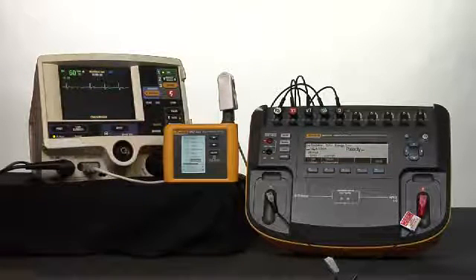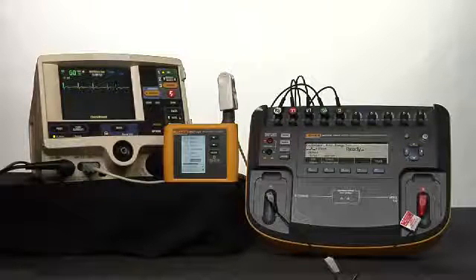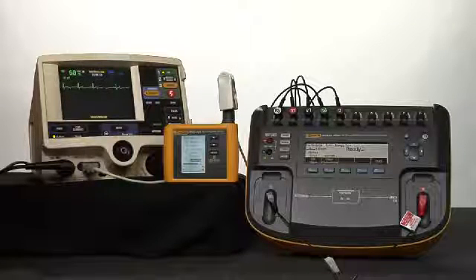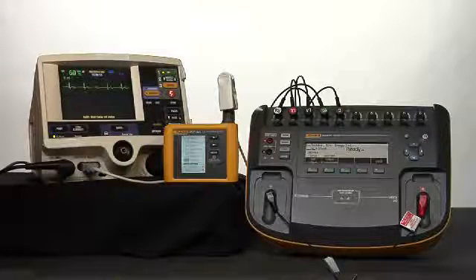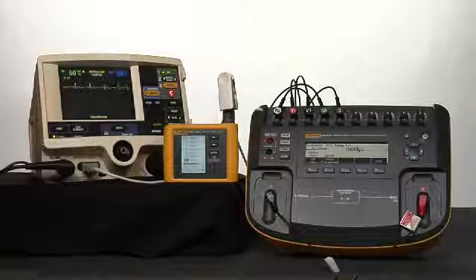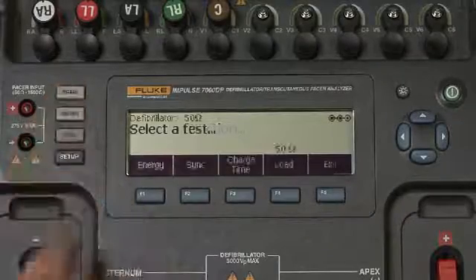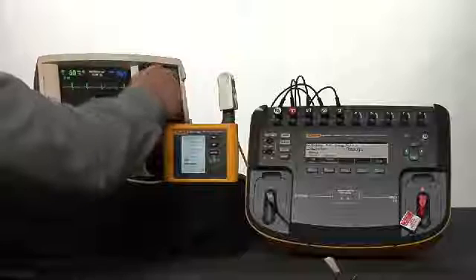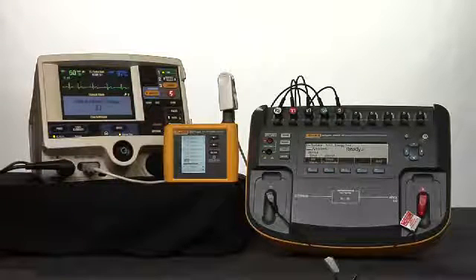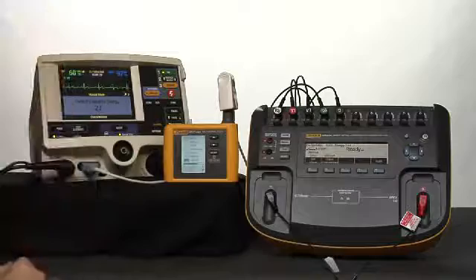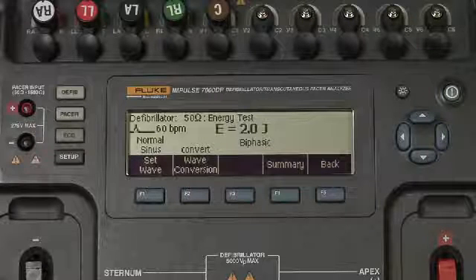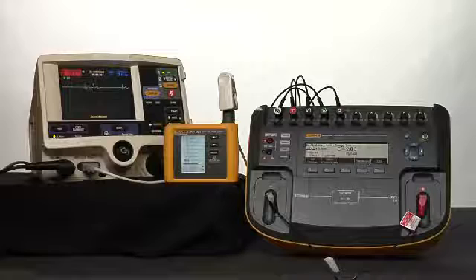At this point we're going to test the delivered energy. We will set up the device under test and the Impulse using the quick connect cables. Quick connect cable adapter is connected to the Impulse 7000. We're going to select the energy select button and select two joules. Two joules is selected. Press the charge button and wait for the device under test to reach full charge. Charging. Discharging. 2.0 joules measured, well within the acceptable output of 1 to 3 joules.